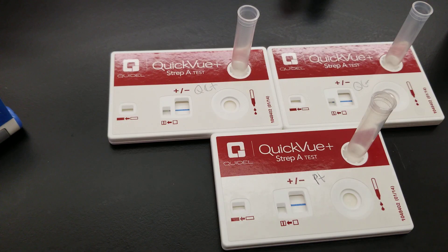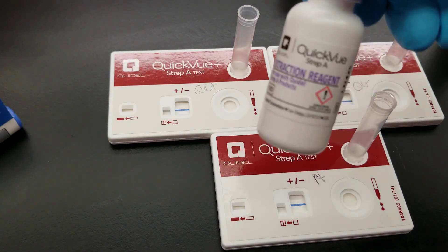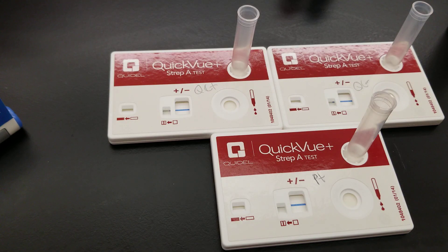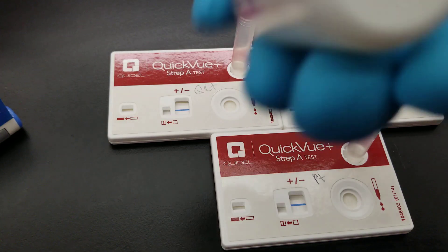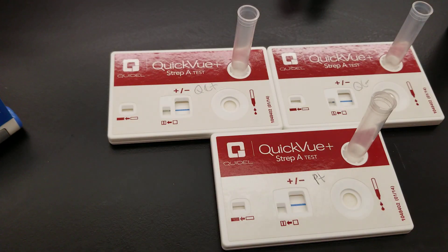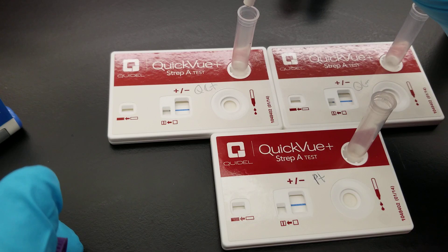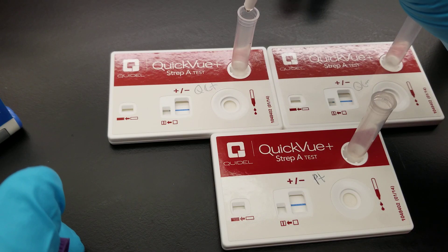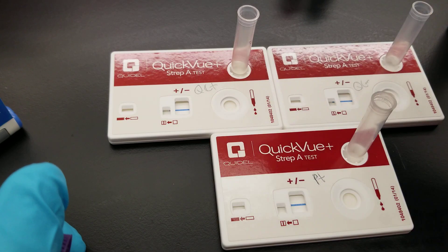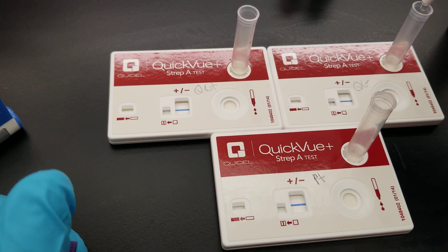We've got extraction reagent A. We're going to add four vertical drops into every single one. One, two, three, four. We always treat QC just like a patient specimen.